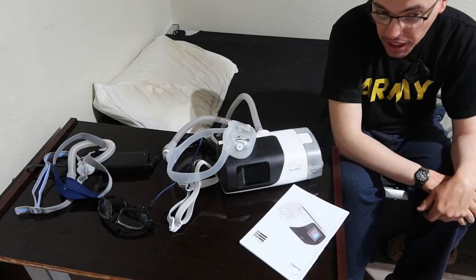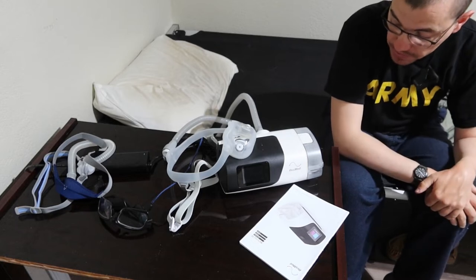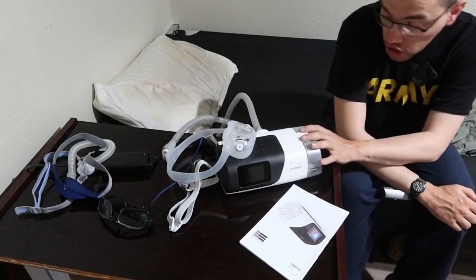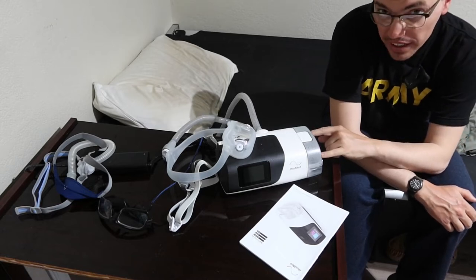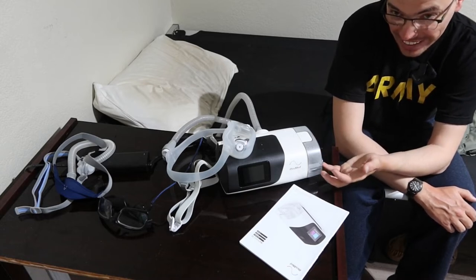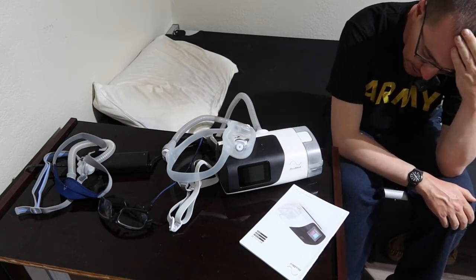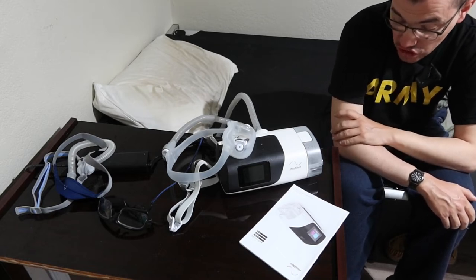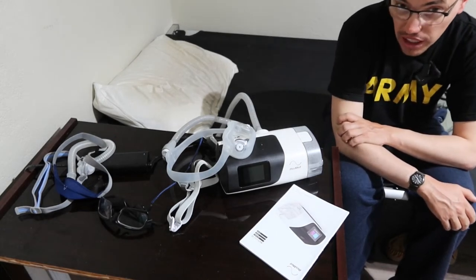This has not reduced my snoring, but snoring was not my problem. So far, it has not increased my sleep at all. It has a humidifier tank, which you really want — it's dry in the desert. I'd recommend cranking the humidity up a bit, because when I don't, I get very dry and sore in the back of my throat and nose.